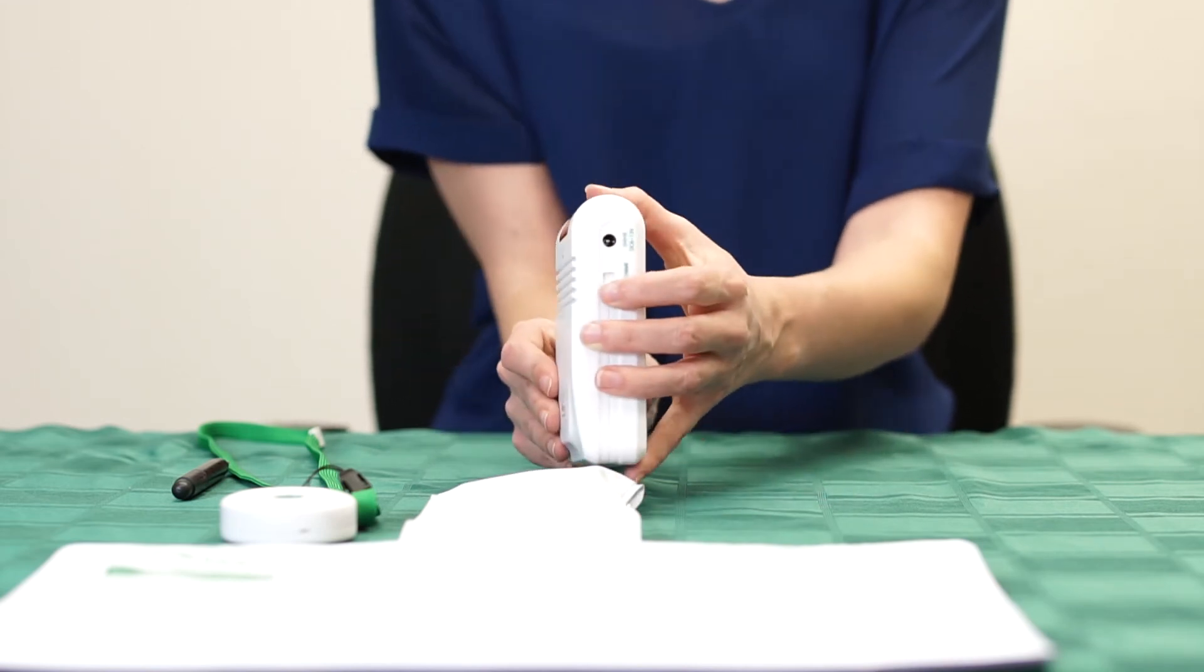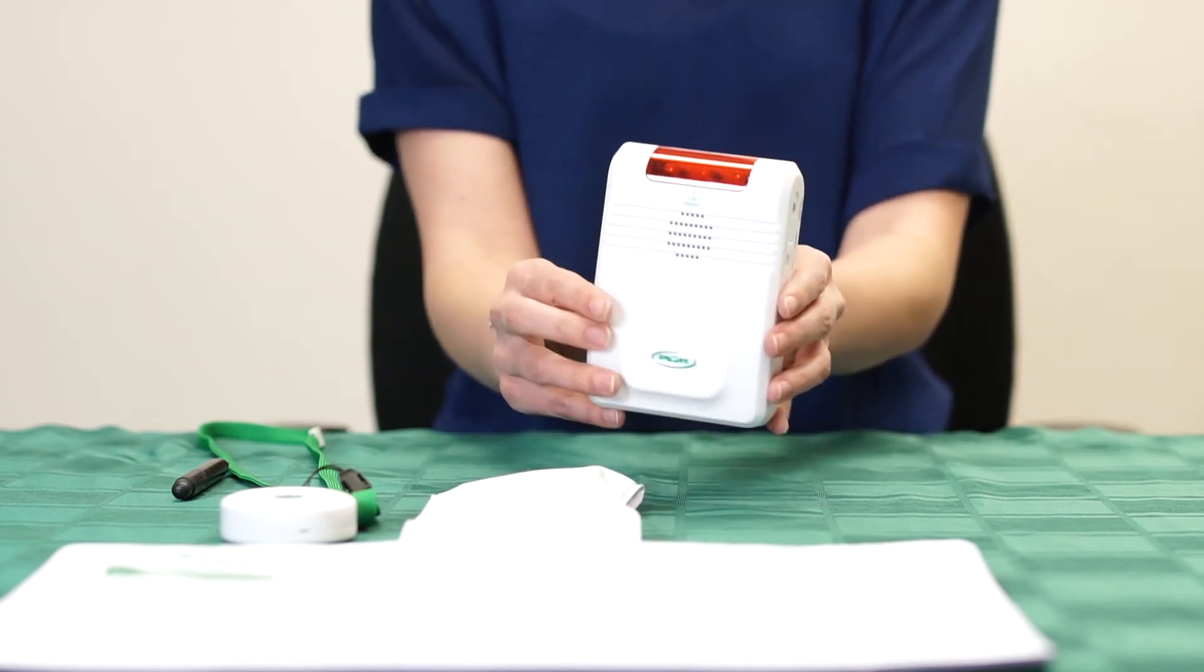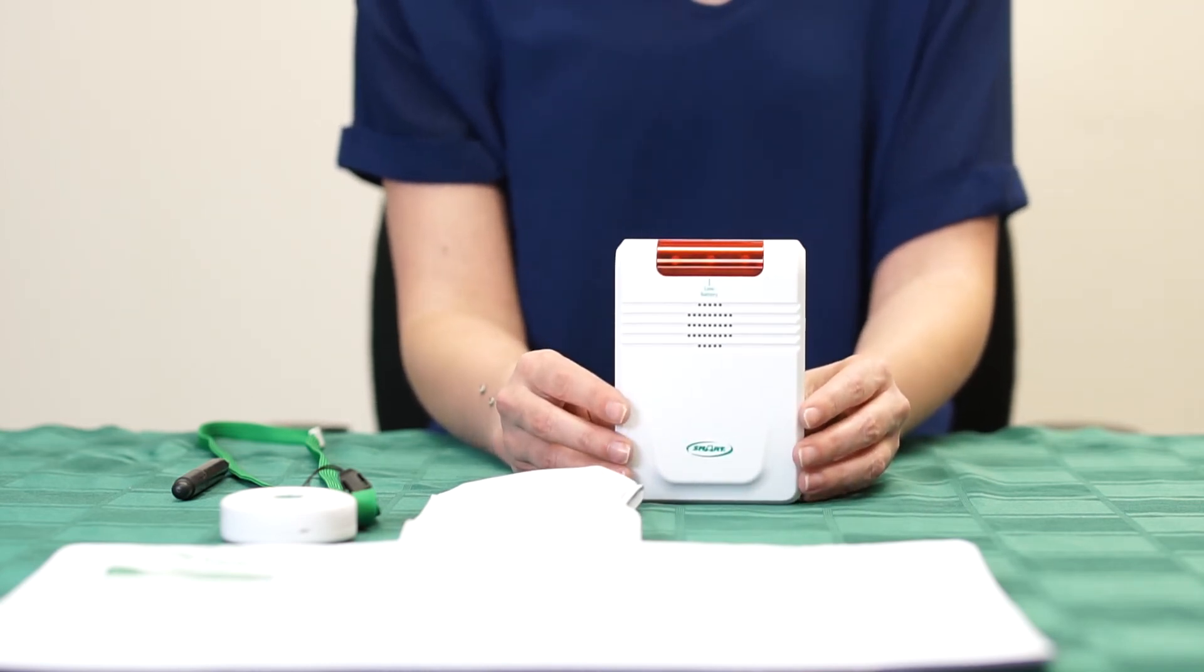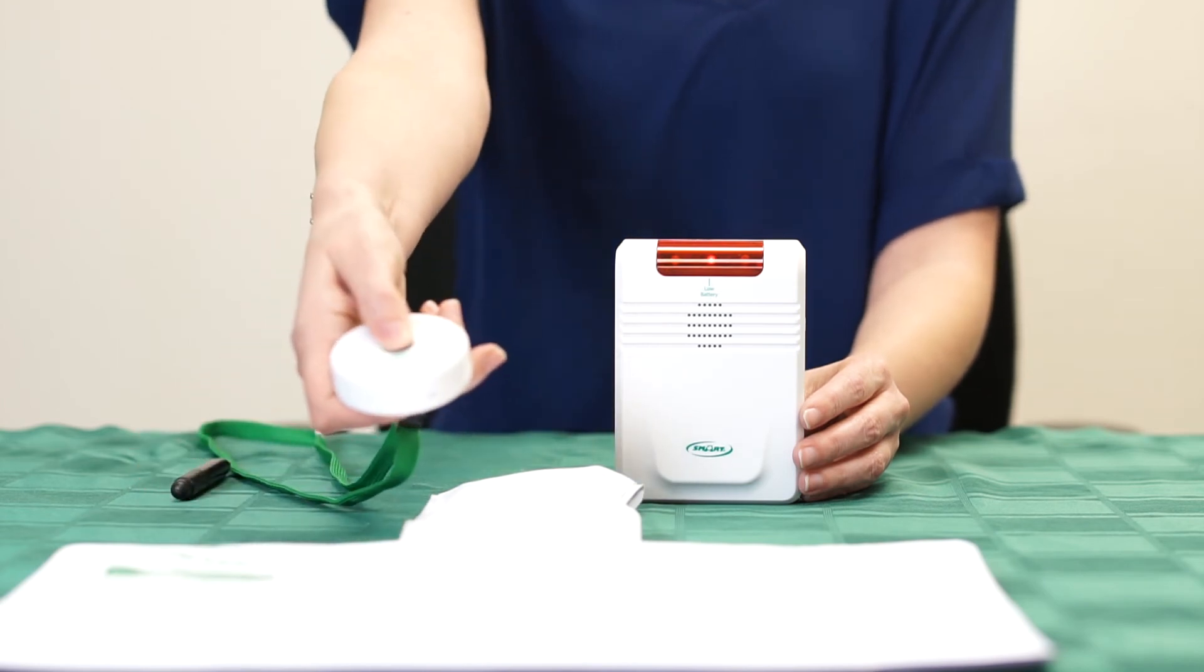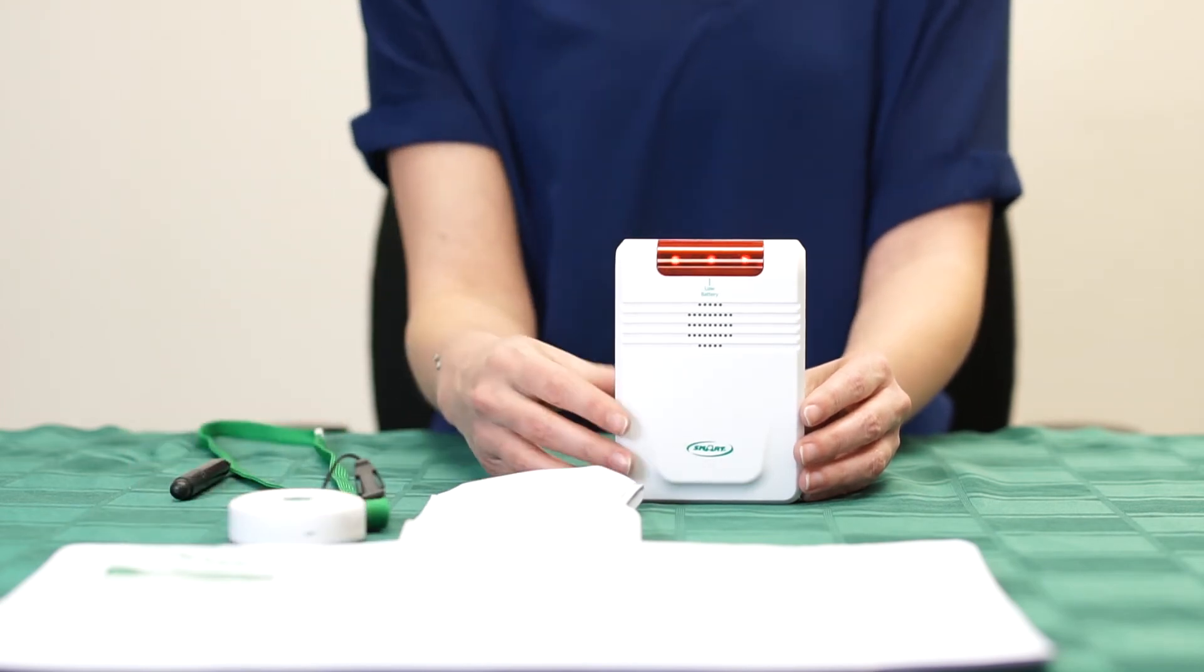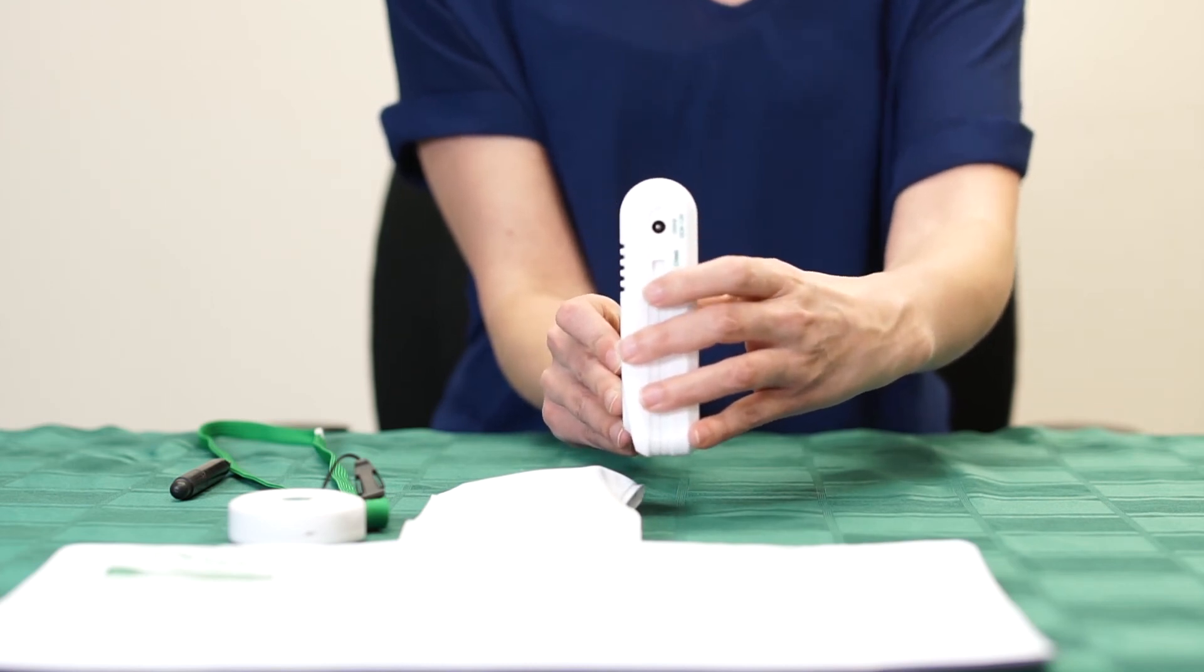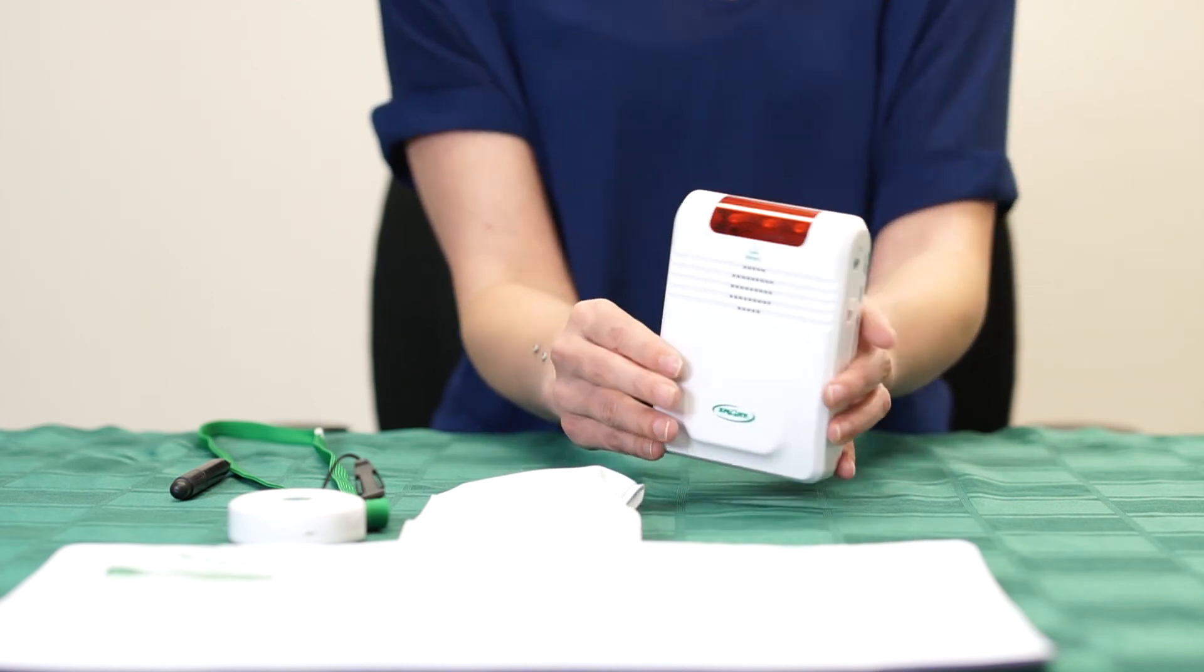Turn the alarm to the chime position so that you can test out your program components. Remember that you must turn off the monitor to silence the alarm and then turn it back to the chime position to reset the monitor.